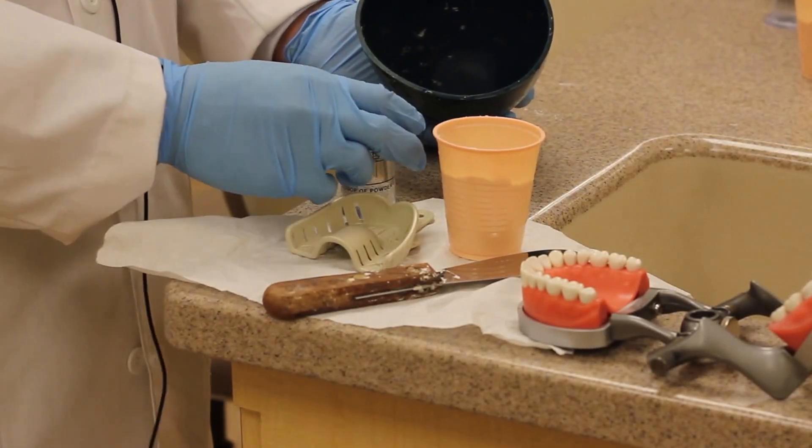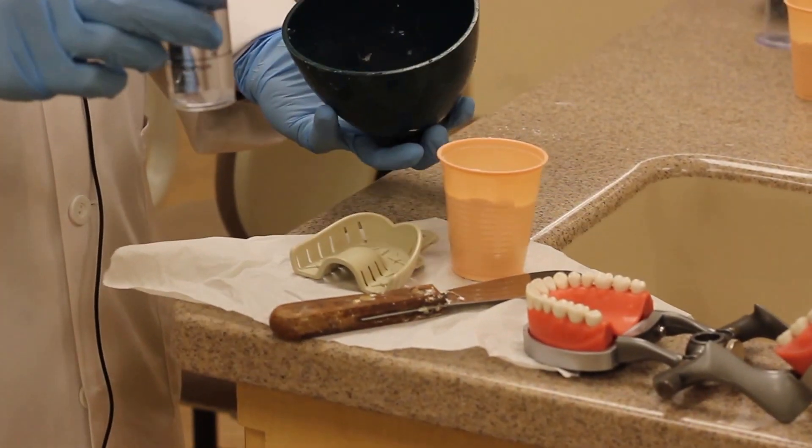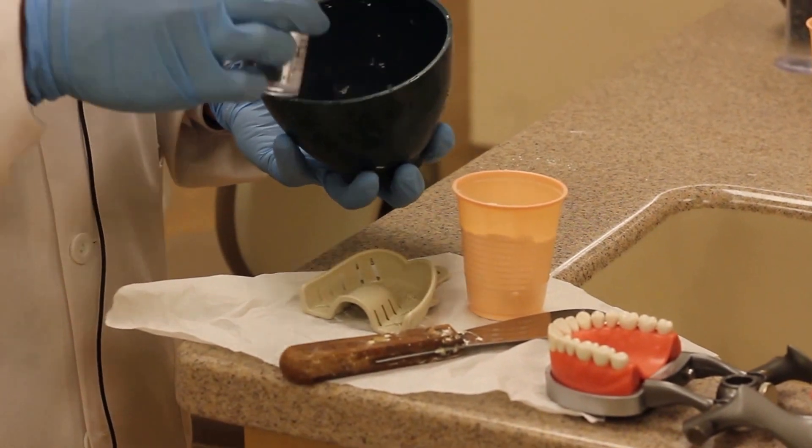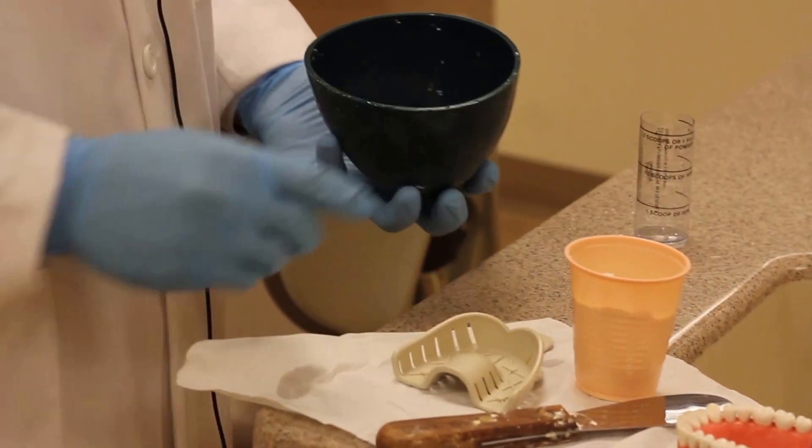So today we're going to mix alginate. We'll fill it up to the third line. We use three scoops and I always like to put the water in first.